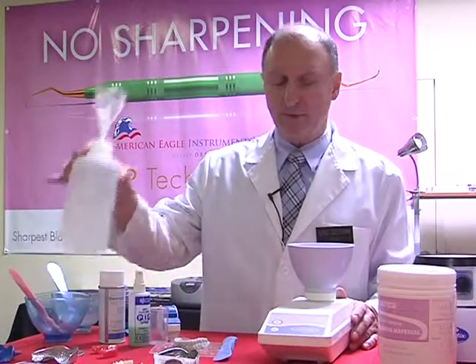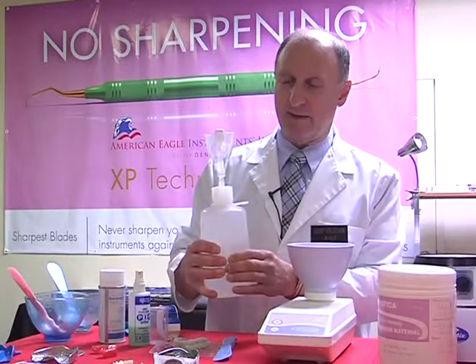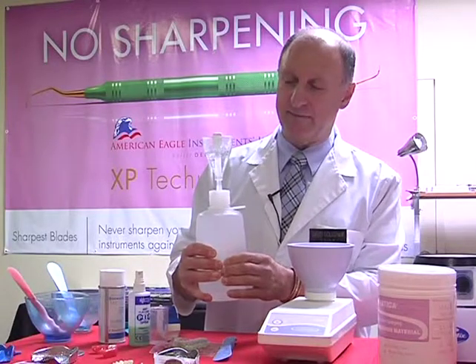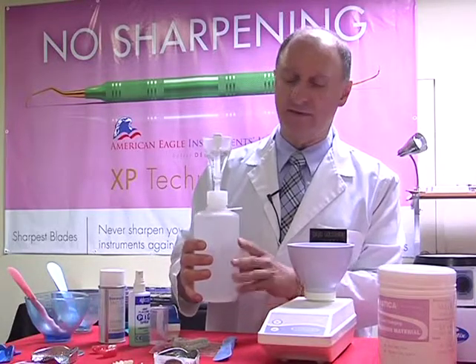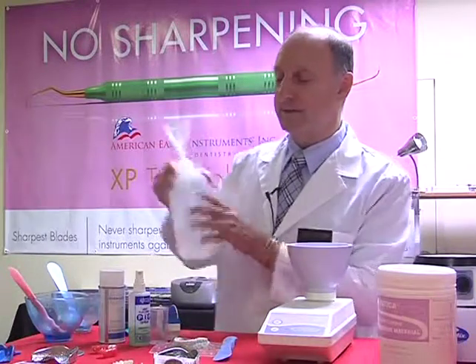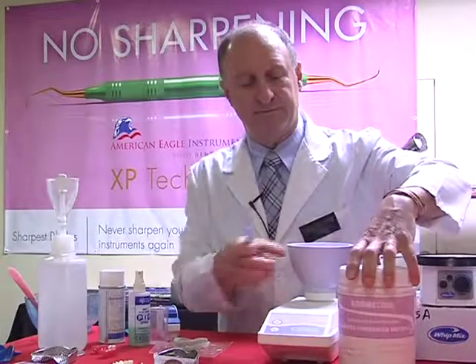So I'm going to measure off my water. Again, I'm going to use this little H2O dispenser. And these are things you can pick up from your local supply company. This is around $29, just to give you an idea. So as I squeeze this, it's going to measure off our 2 levels of water, which I'm putting directly into our mixing bowl. I'm going to do the same thing again for our alginate.